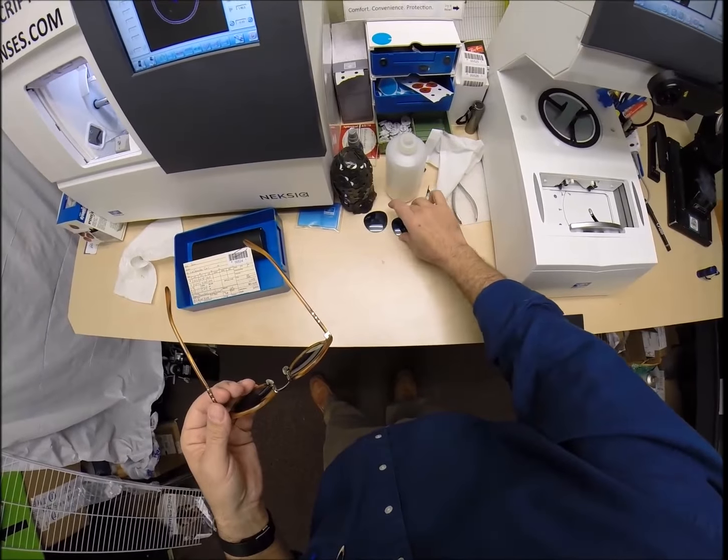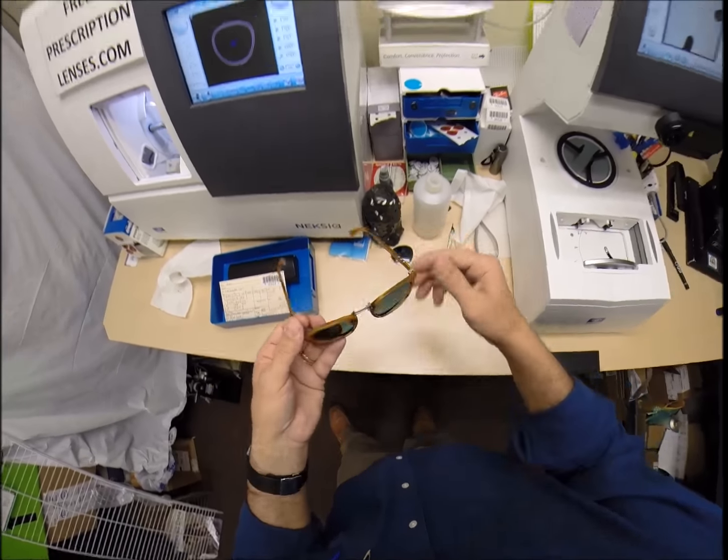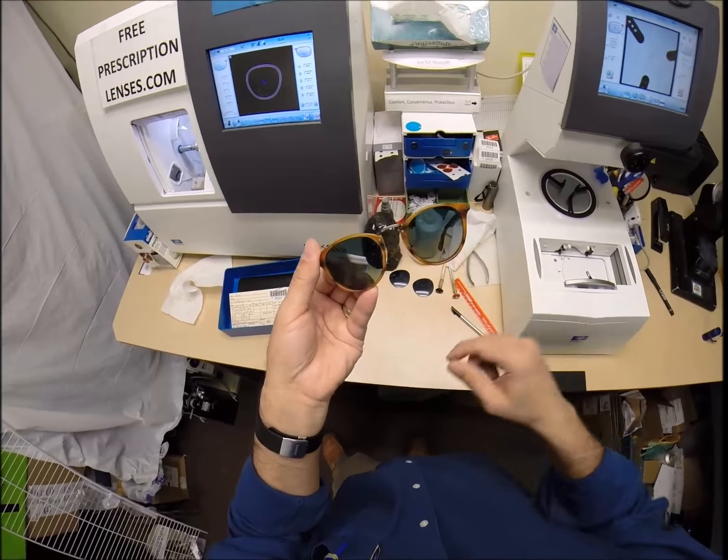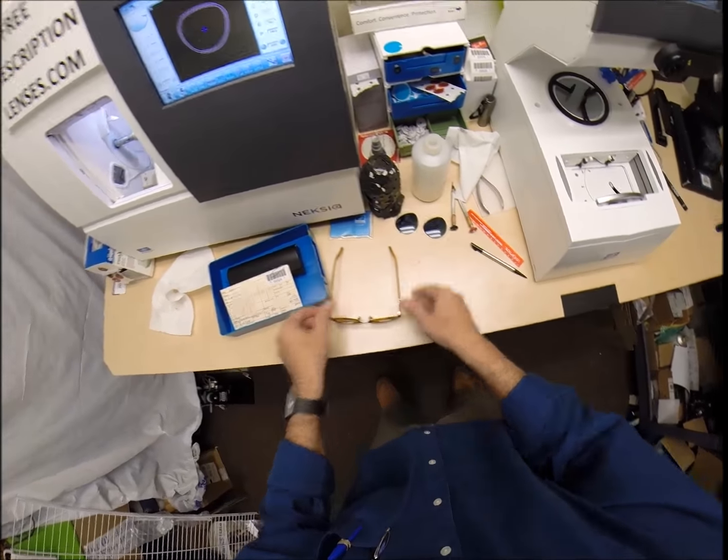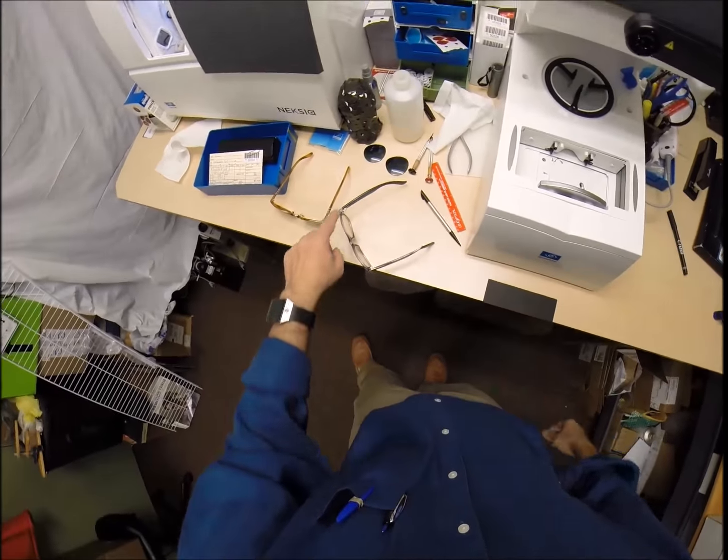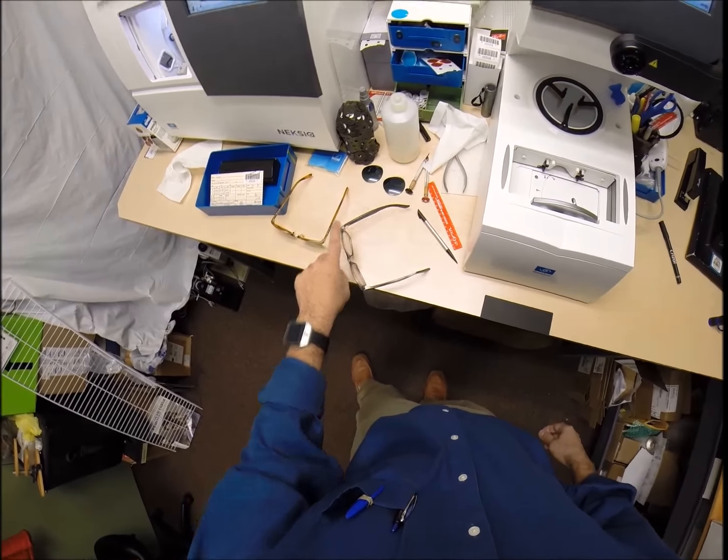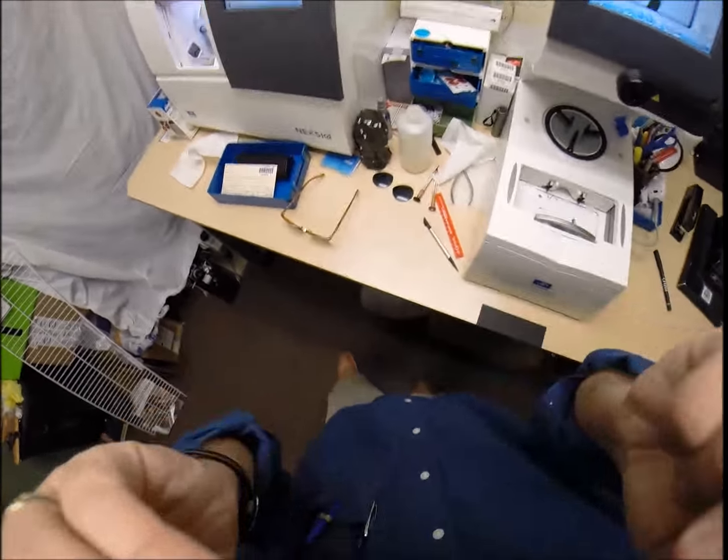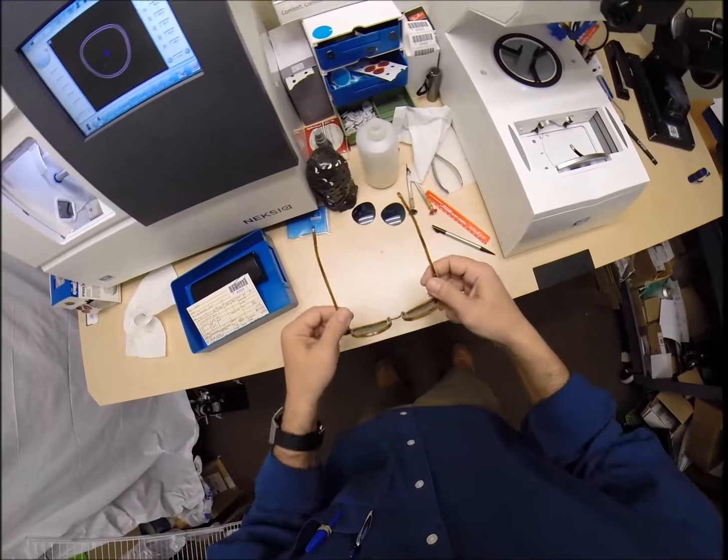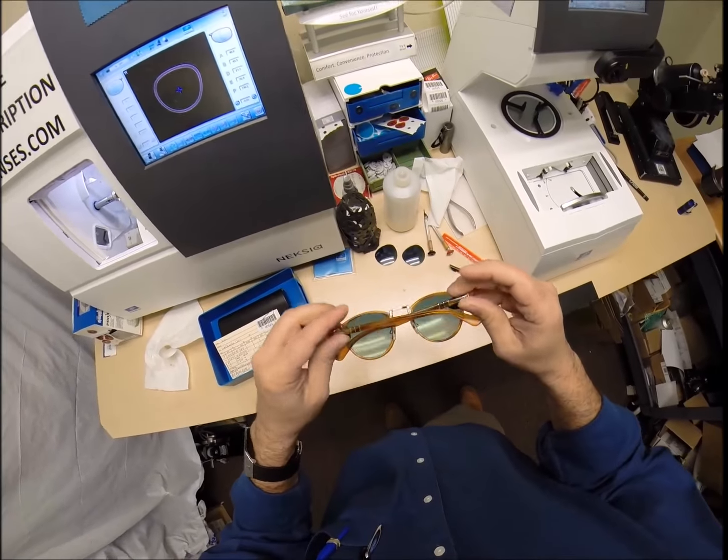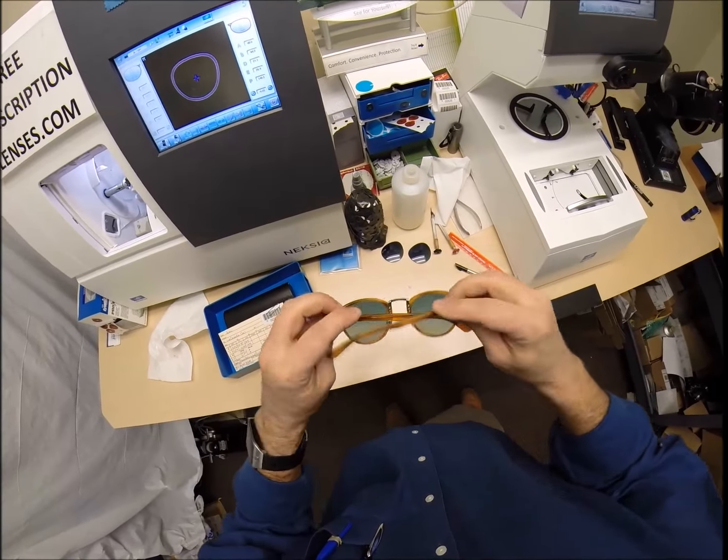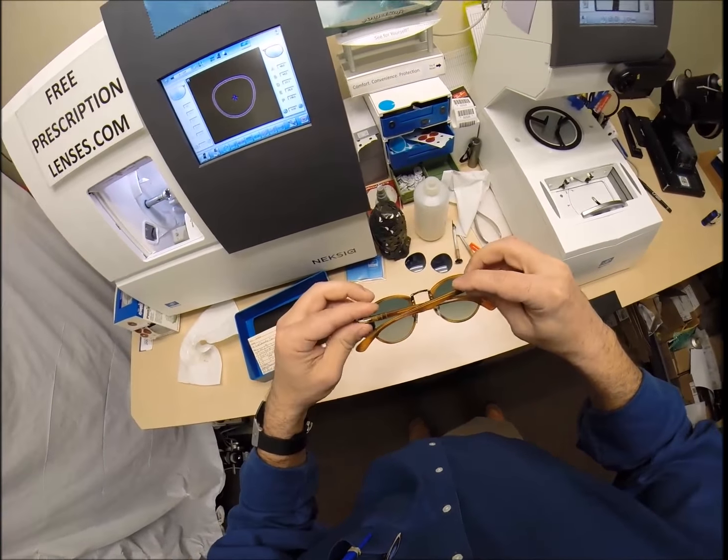One, two, and the bottom of the frame is three. Even though these are your frames, he told me they're brand new. Because, the original heavy glass lenses are in there. So, this is going to be lighter weight and safer with the unbreakable impact resistant lenses. But, I put them on the counter and press down. There is no wobble. And, when I say wobble, I'm part of that 80%. When I take mine off and put them on the counter, they wobble. But, they sit level on me. Let me put mine back on so I can see what I'm doing. Press down. There is no wobble. Close each temple to make sure they overlap perfectly. And, that neither one is askew like that.